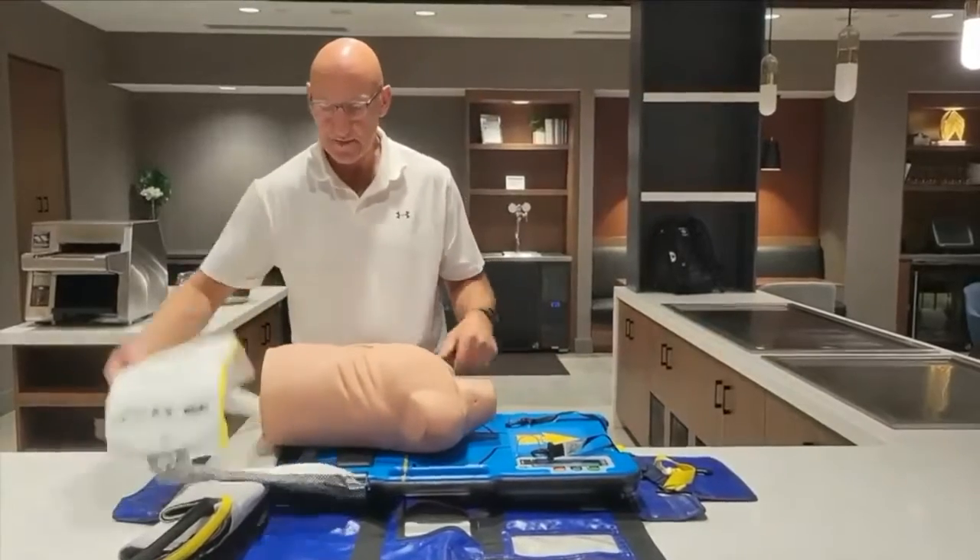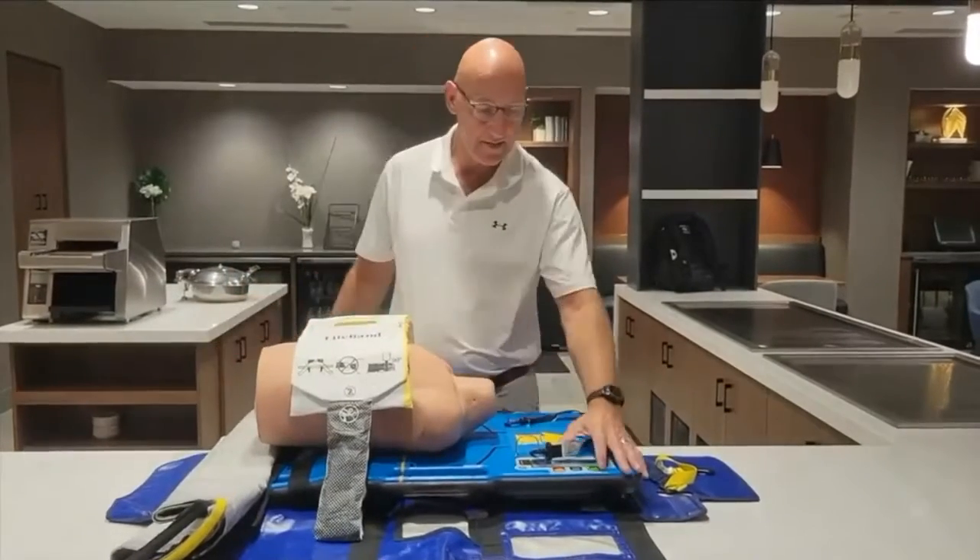Again, as I place the patient down on top of the board, set the band on top, and hit the green button.